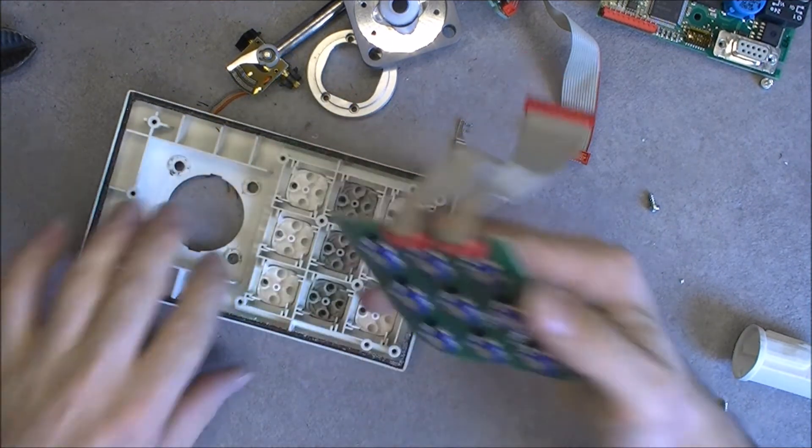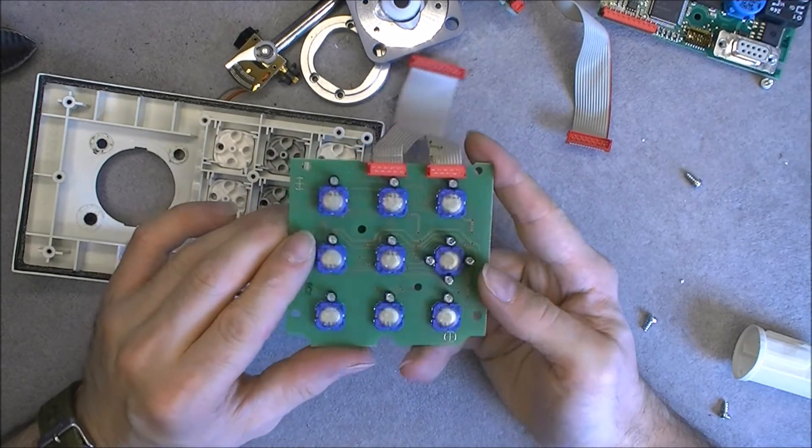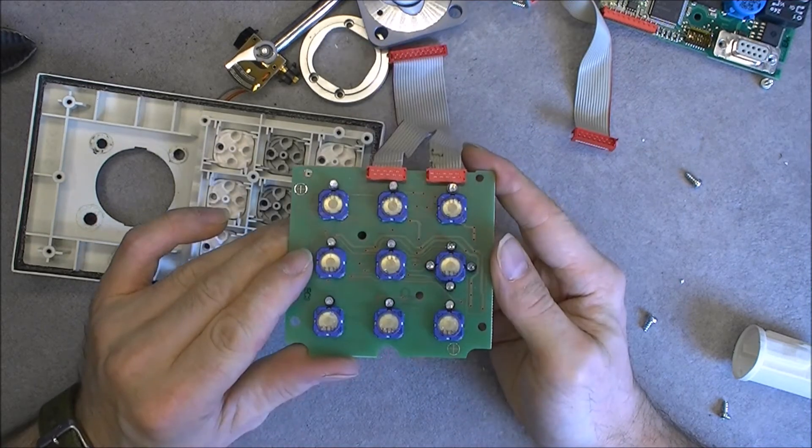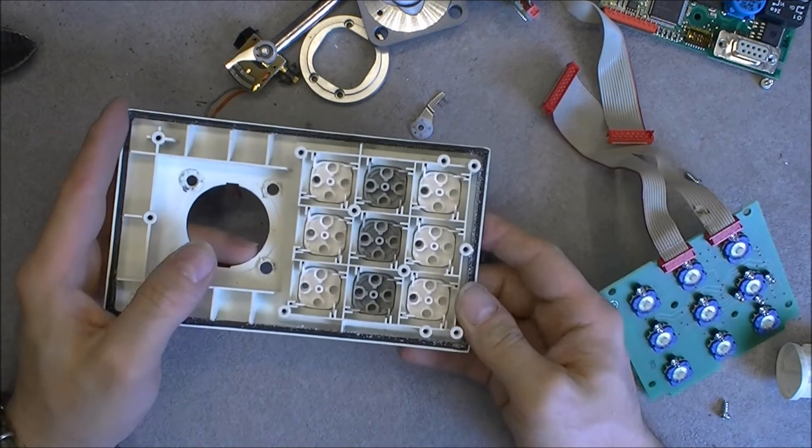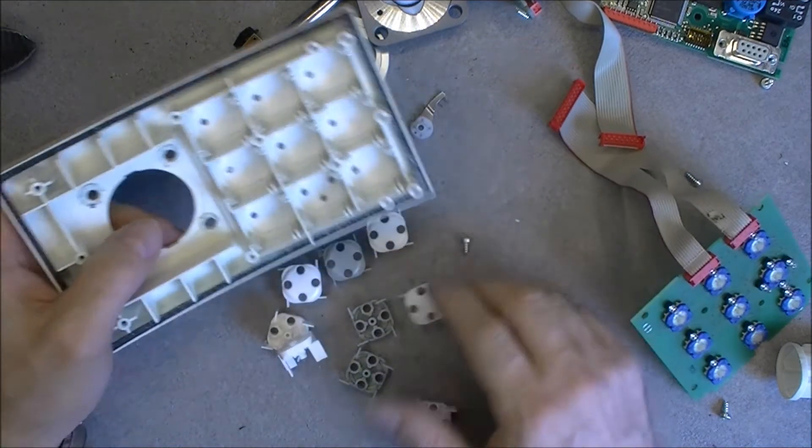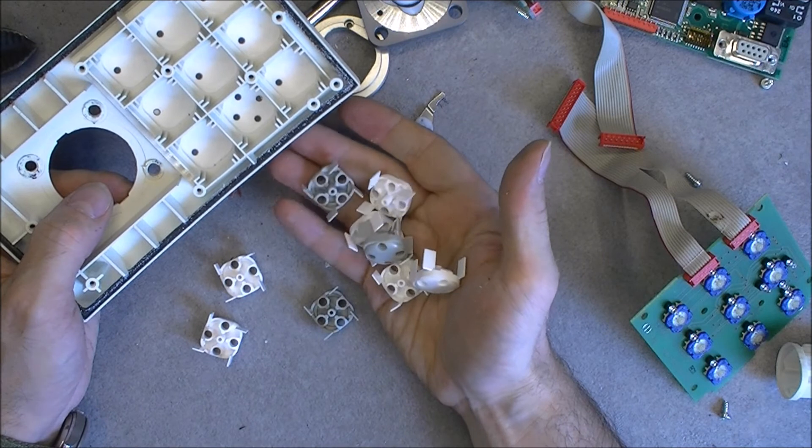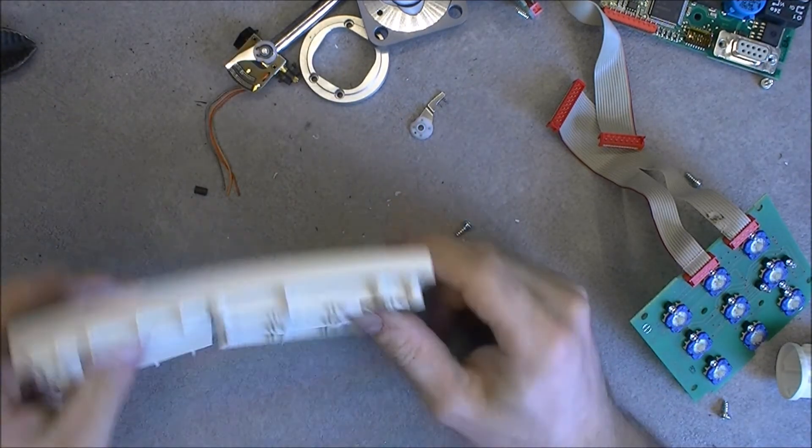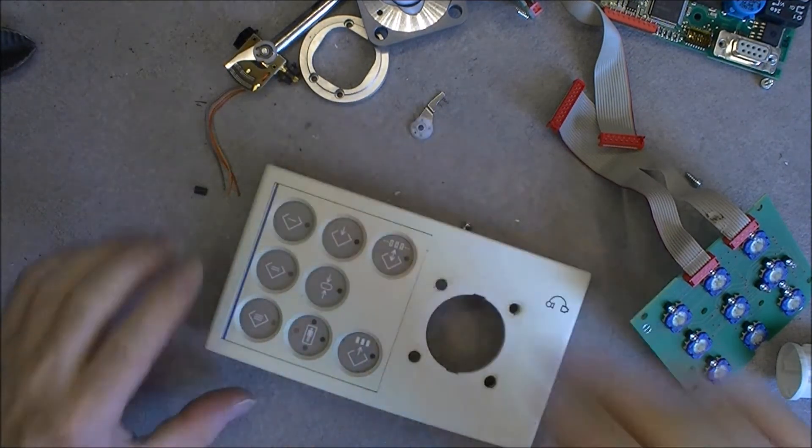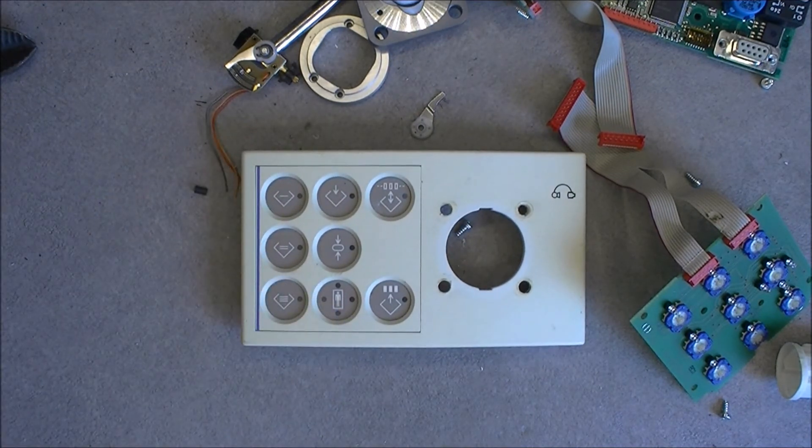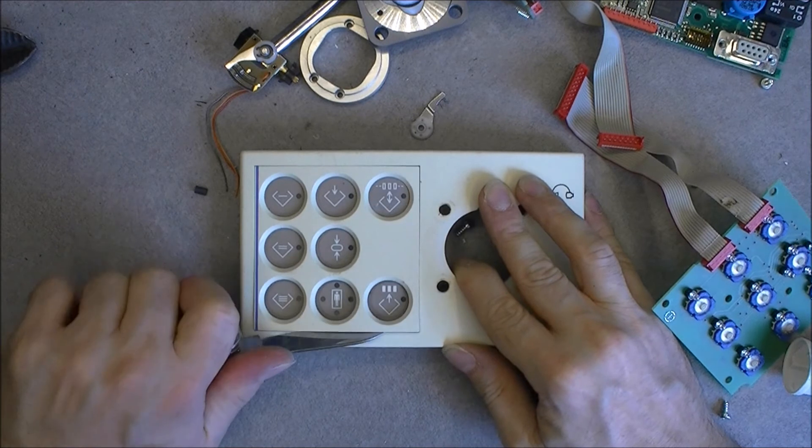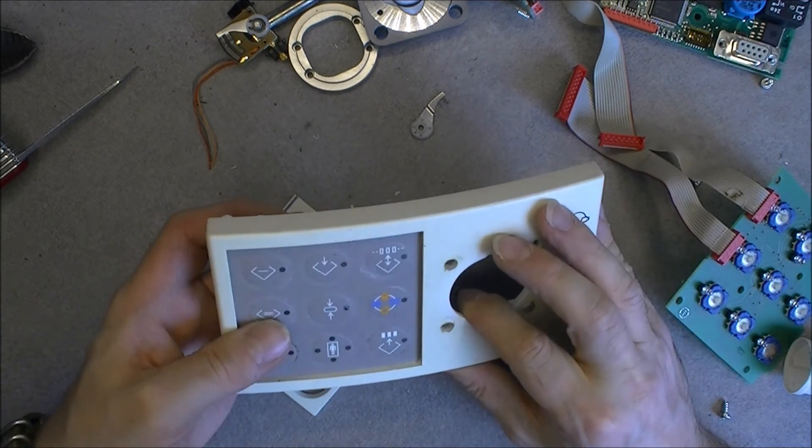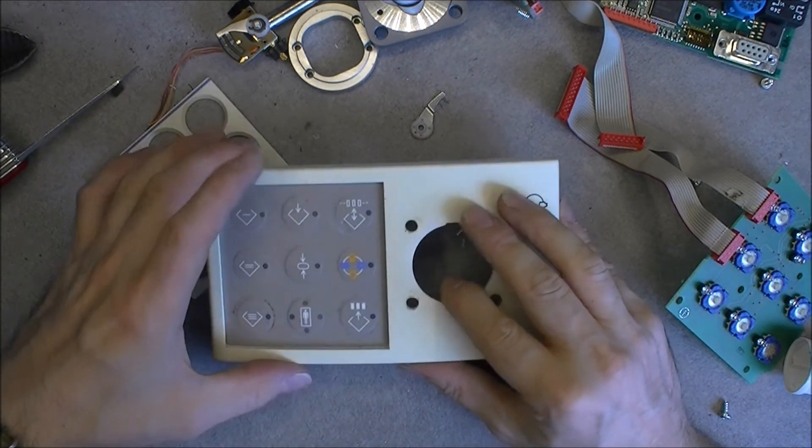Okay, so here it is interesting that this one, we have a different model of buttons and LEDs, still very nice quality, by the way. And these button modules are different also from what we saw in the mouse part. They are a lot lighter, not the same quality. And we are almost done. So there is one thing, on the mouse controller I did pop out this plate, and it is the same thing here, I guess. Yes, you can pop out the plate. Interesting. And you have the membrane keyboard, which was already damaged here, by the way.